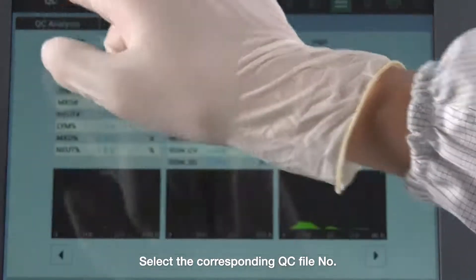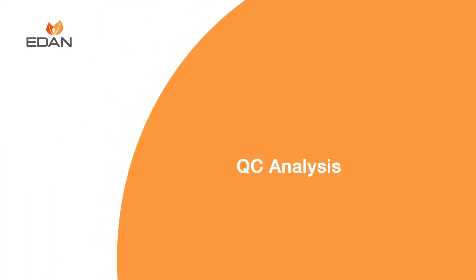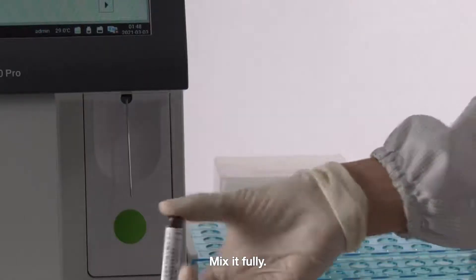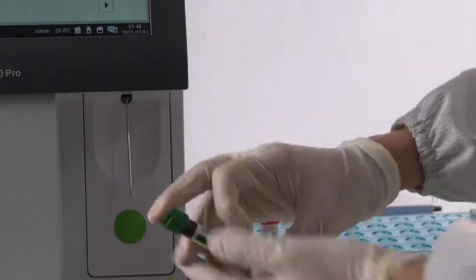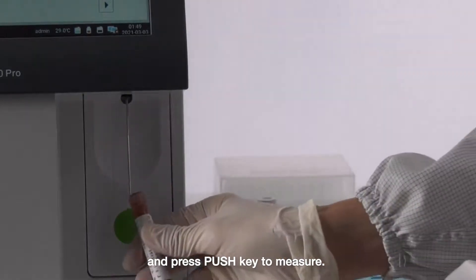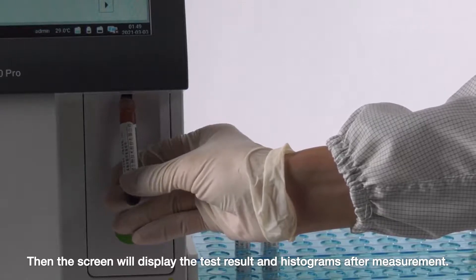Select the corresponding quality control file number. Then put the control under the sample probe and mix it fully. Press the Push key to measure. The screen will then display the test result and histograms after measurement.